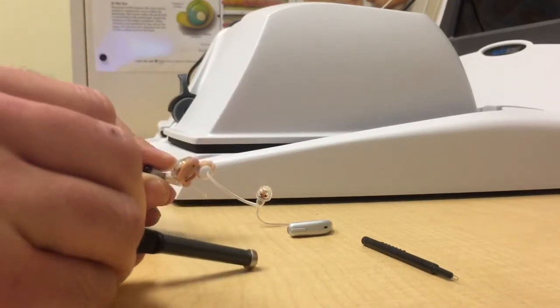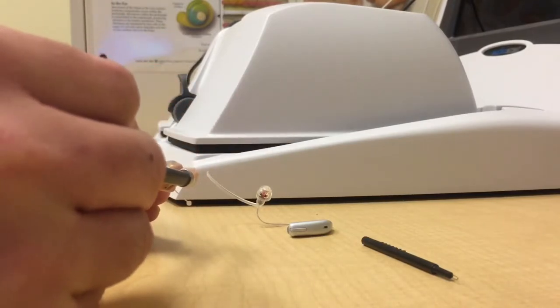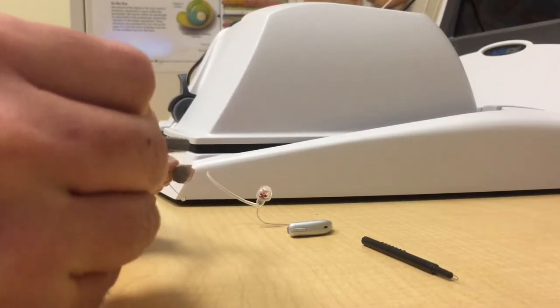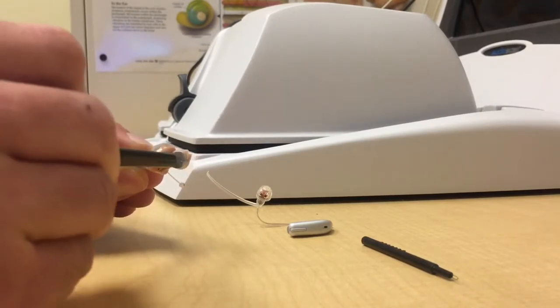And then if I turn the battery on that stick again, I can easily put it back in the hearing aid, just slide it right into that door. But instead of pulling the stick straight off, you have to slide it backwards or slide it against that door so the battery won't come out.